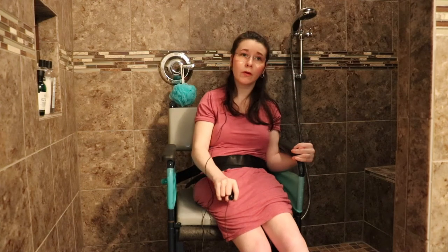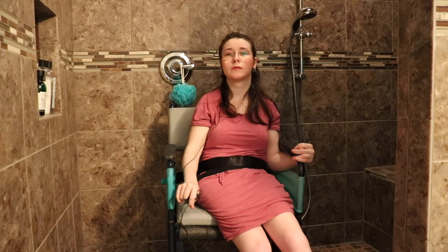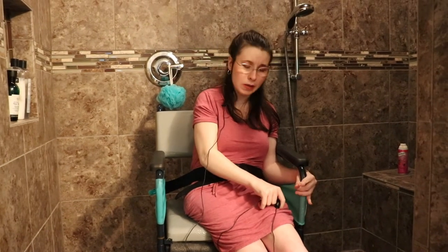The main reason I wanted to do this video was to show how we have to modify my shower chair. What we usually do is I bring my motorized wheelchair in here and transfer into the shower chair, and then my mom has to undress me and get me adjusted. You can see the therapy bands on the sides — you can see how close my leg is to the therapy band.